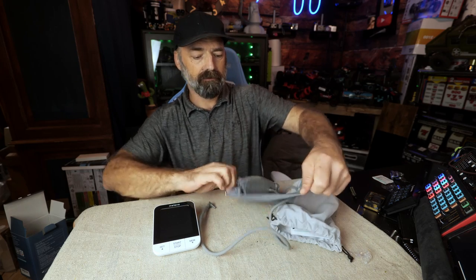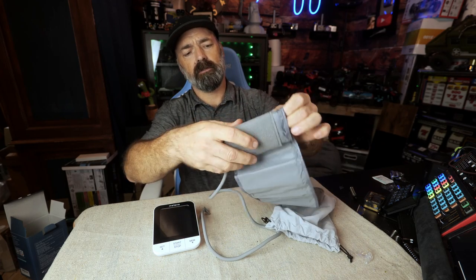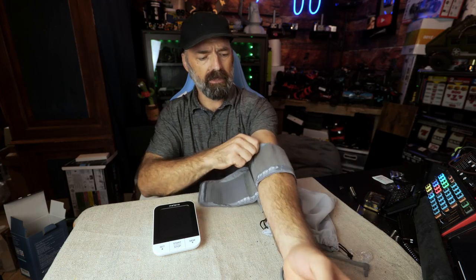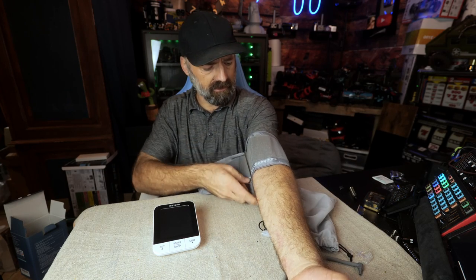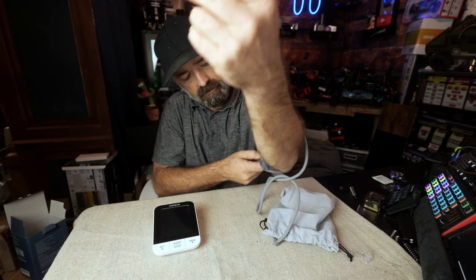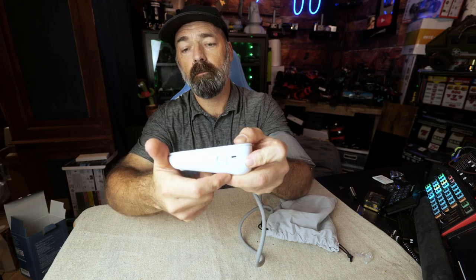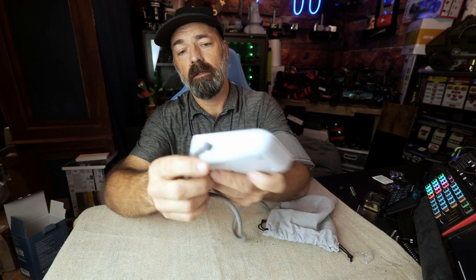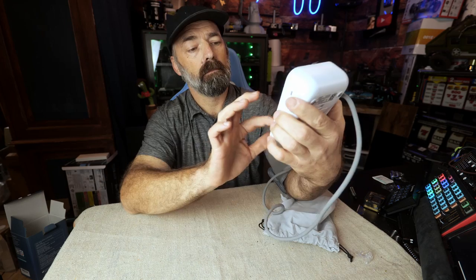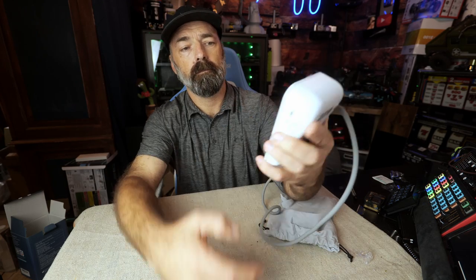It's funny that I have high blood pressure because I'm generally one of the most chill people you'll ever meet — I'm like the teacher on Ferris Bueller. You have your selector here for person one and person two; I'm going to leave it on person one. You plug your cuff into this side and then all you have to do is hit start.